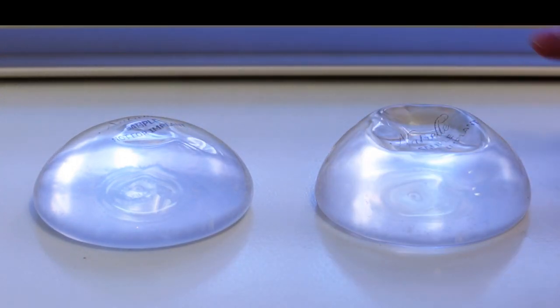But the fill in this implant is firmer and more cohesive, which leads to this less likely to ripple and wrinkle, and a firmer feel overall to the augmented breast with these.